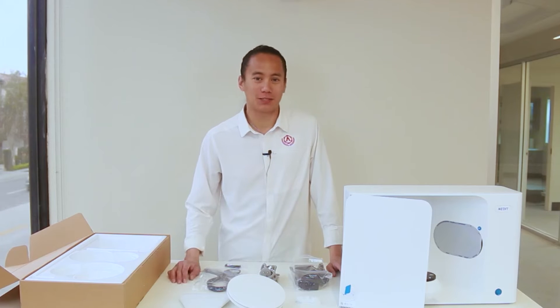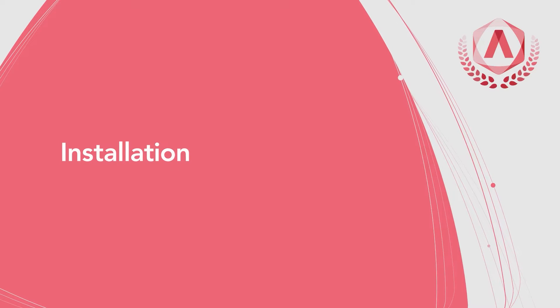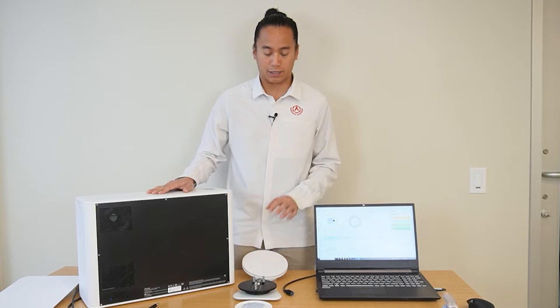Now that we've gone over all the accessories, we're ready to install and calibrate the scanner. Now that we have the scanner and accessories unboxed, let's go ahead and start the install.